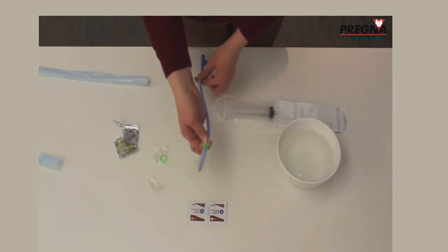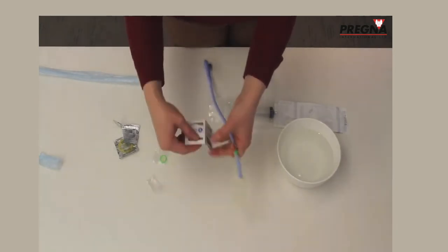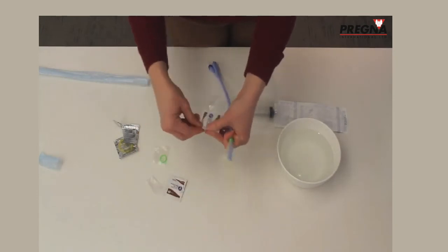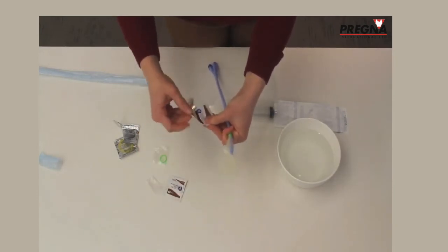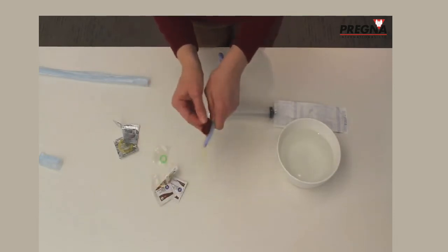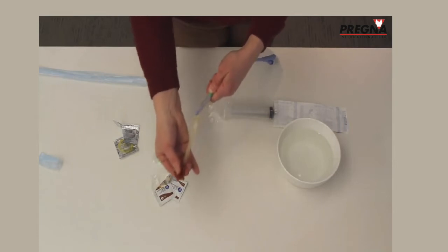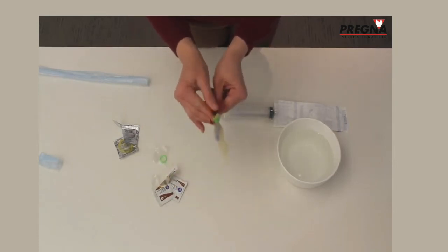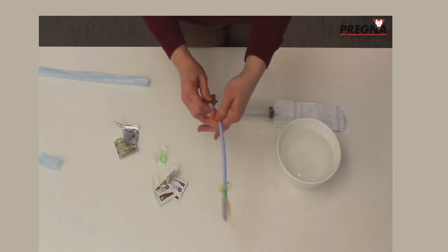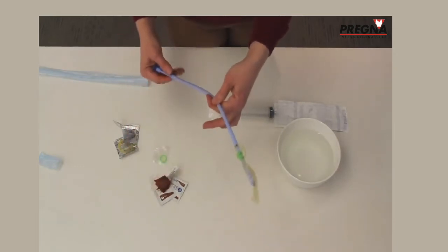The last step for assembly is to make sure that everything is dry. Use an iodine wipe — the part that goes into the uterus is the condom, so that part is the cleanest, then wipe down to the shaft of the Foley catheter. You are using sterile gloves while doing this part of the procedure.